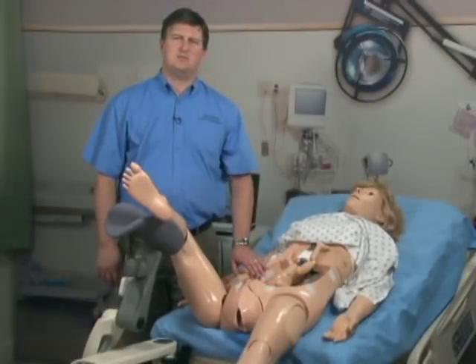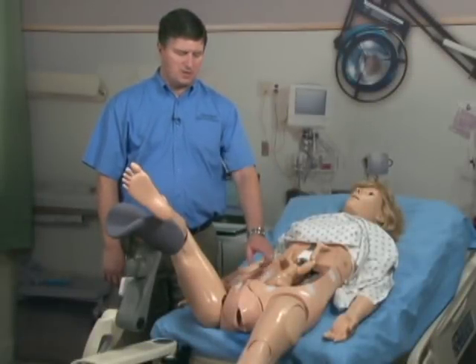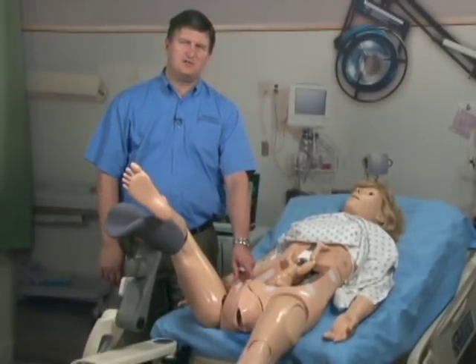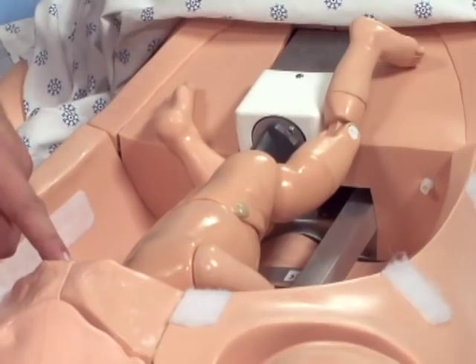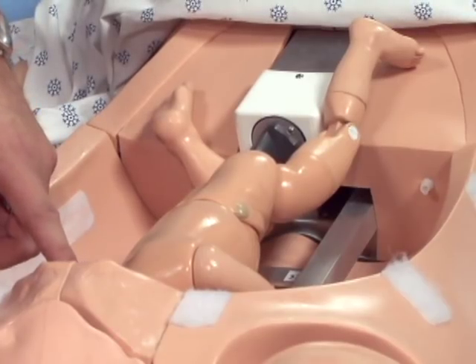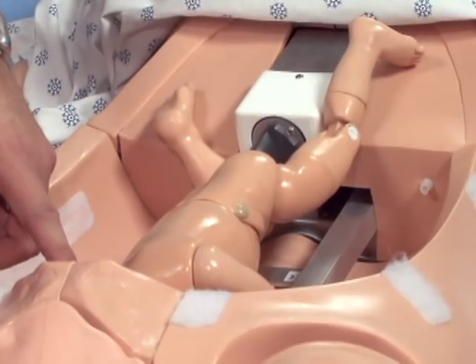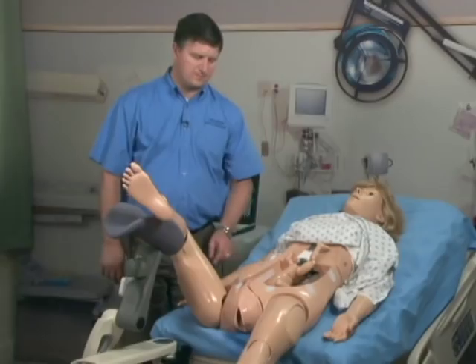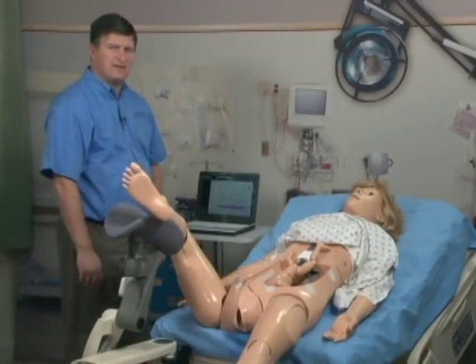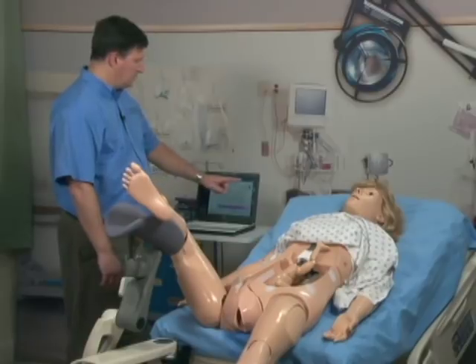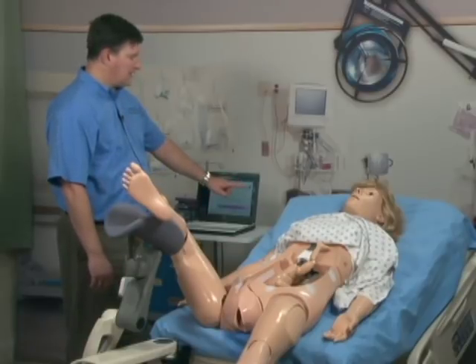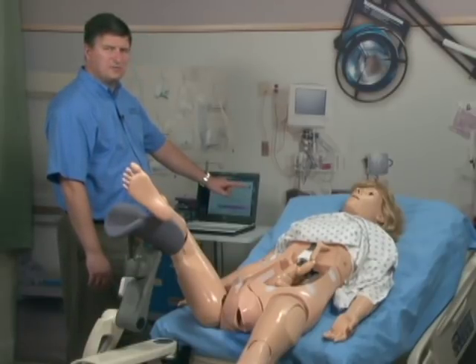When you attach the baby to the birthing mechanism, note the initial position of the head. In this case, we have the baby set at ROA. Then, before you run the actual delivery, you must ensure you have the matching ROA checked on the software.